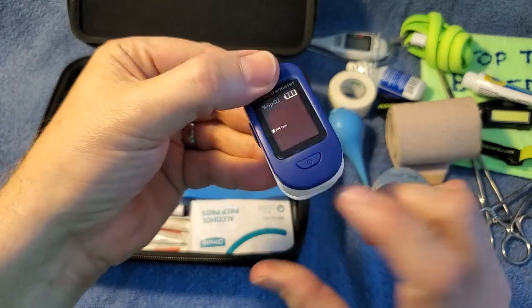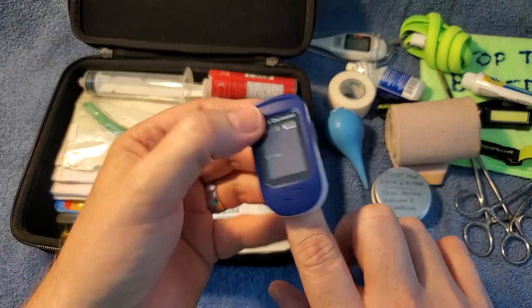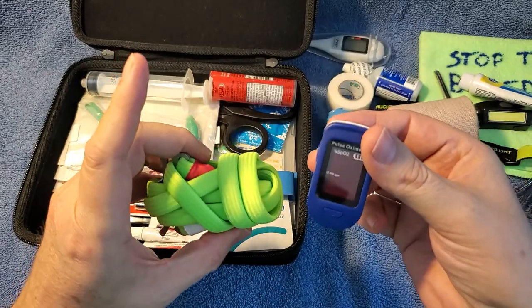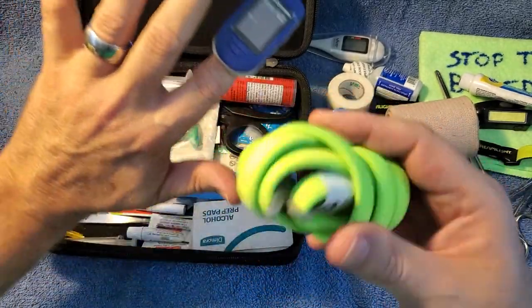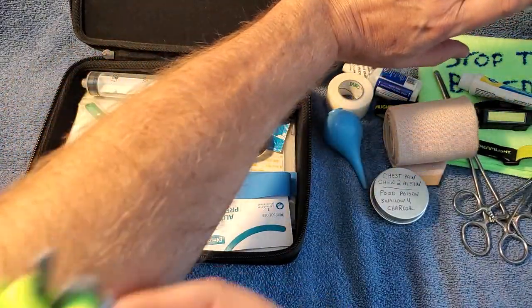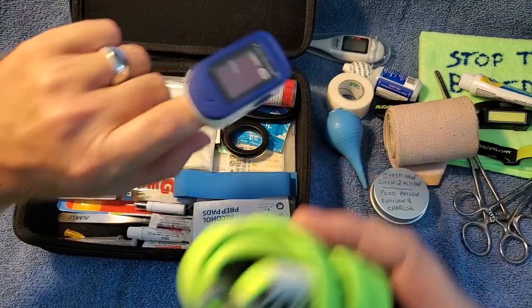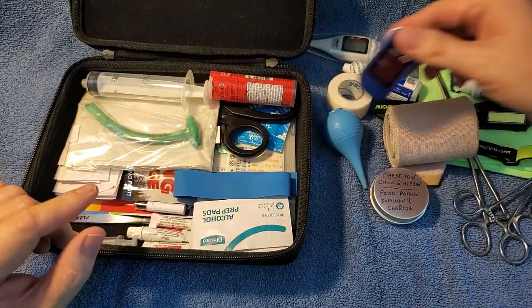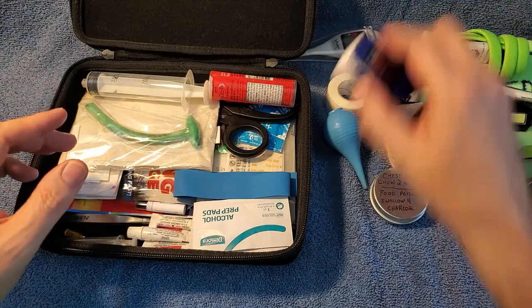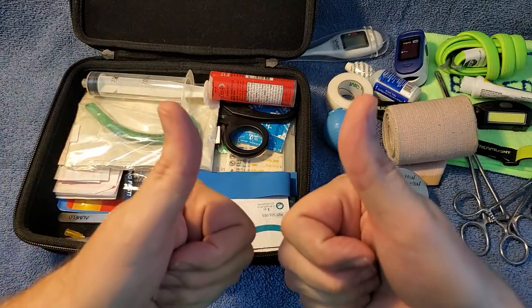This is just a pulse oximeter. It tells you what your pulse rate is and other stats. I like to use this with your tourniquet — if you've got a bleeding artery, you want to make sure you're shutting it off when you apply the tourniquet. You can put it on people's toes too, and it'll show the heart rate going down so you know if you need to tighten your tourniquet more. It also shows your oxygen and blood levels. Read up on these and YouTube everything so you know how to use them to their maximum potential.